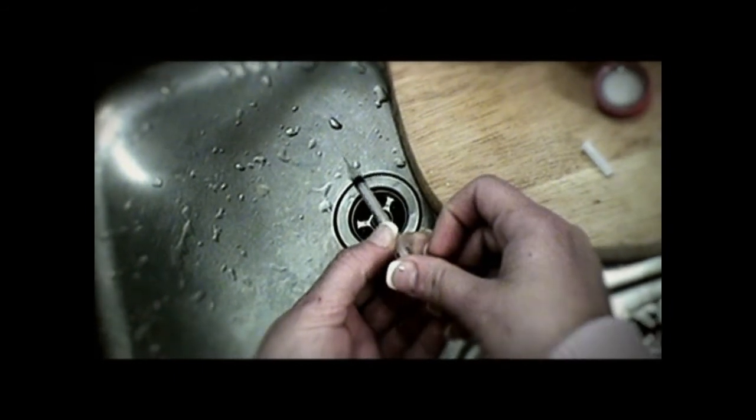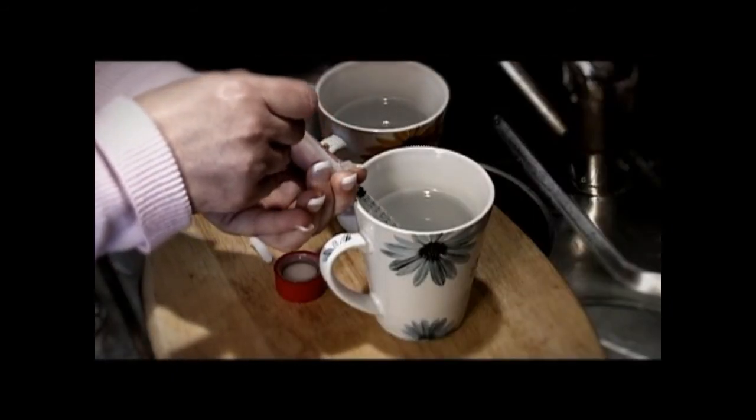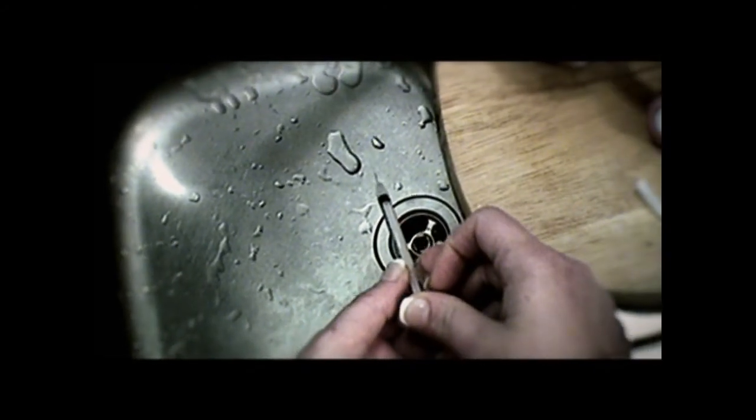You do not need to shake the syringe. You do not need to let the bleach sit in the syringe for any period of time — just the time it takes to load the bleach into the syringe and expel it again is sufficient to kill the virus in more than 99% of syringes tested. The best we could achieve with soaps, alcohols, or a rinse with water was about an 85% reduction.